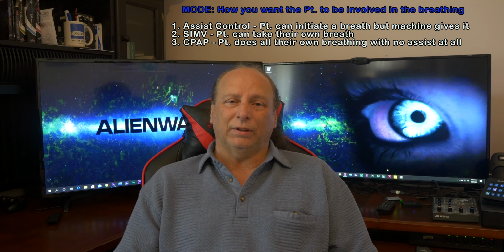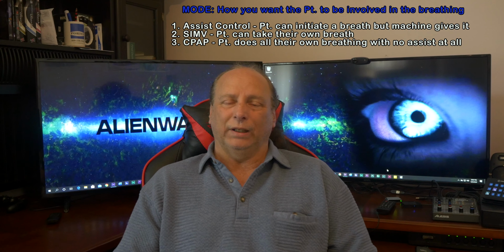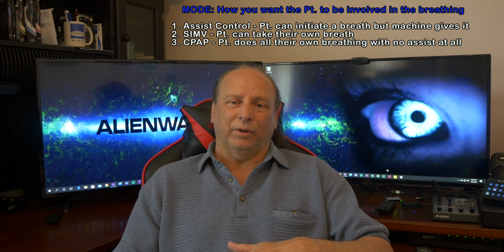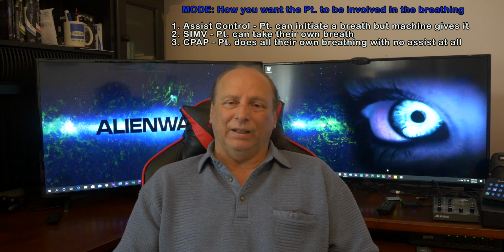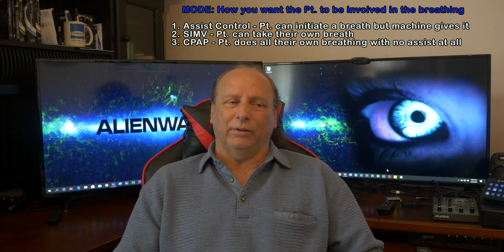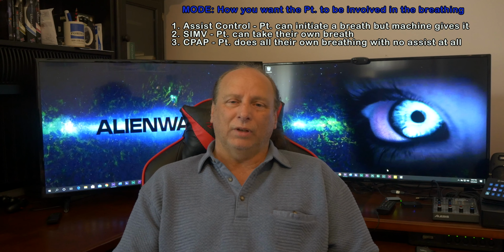So this mode typically would be used as a weaning. So you would go, say for example, they're bad off, you put them on assist control mode, type of ventilation pressure control, and then the patient starts to get better. Their pressures start to come down, but they're still getting good tidal volumes. So eventually doctors want to wean them off. So let's put them on CPAP, see how they breathe all on their own.